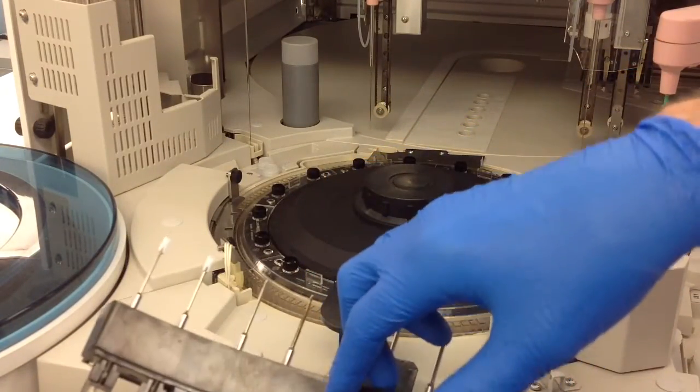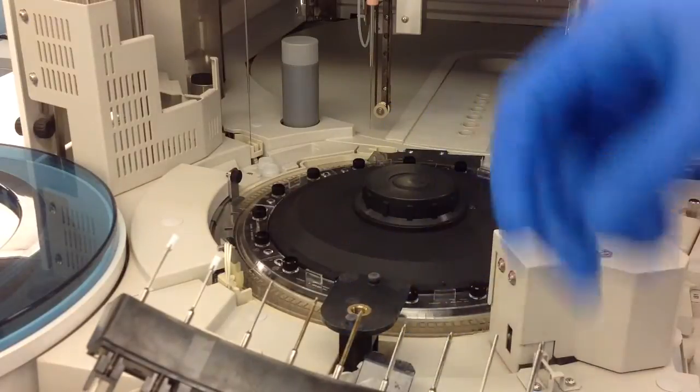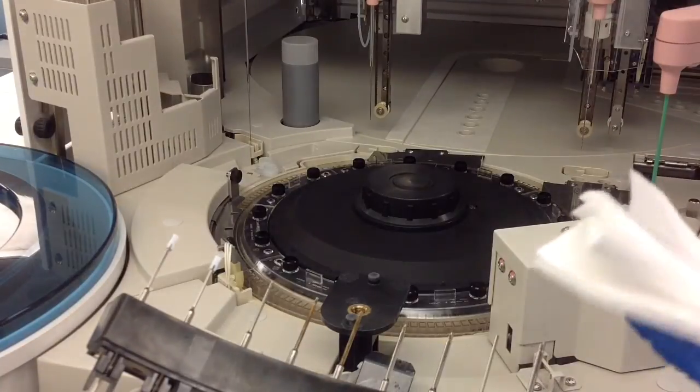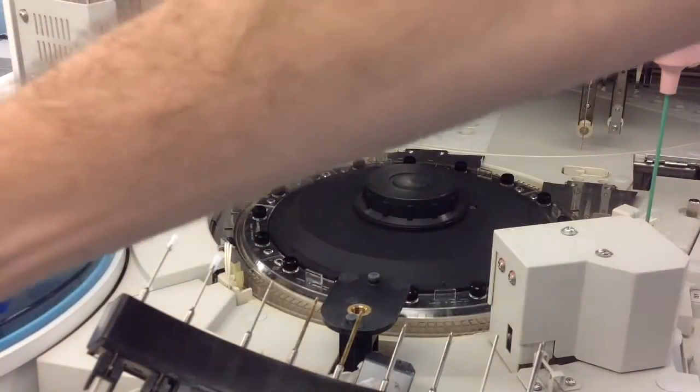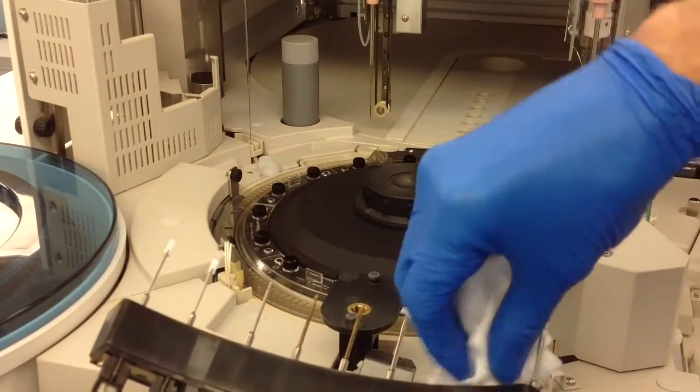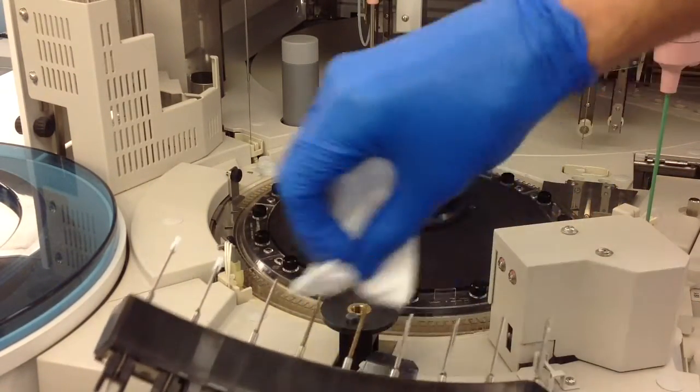But once you unscrew it, just be as gentle as possible because you don't want to damage or kink the tubing any more than is necessary. And for this you're just going to need your lint-free gauze and some deionized water and you're just going to clean each one of these various little probes.